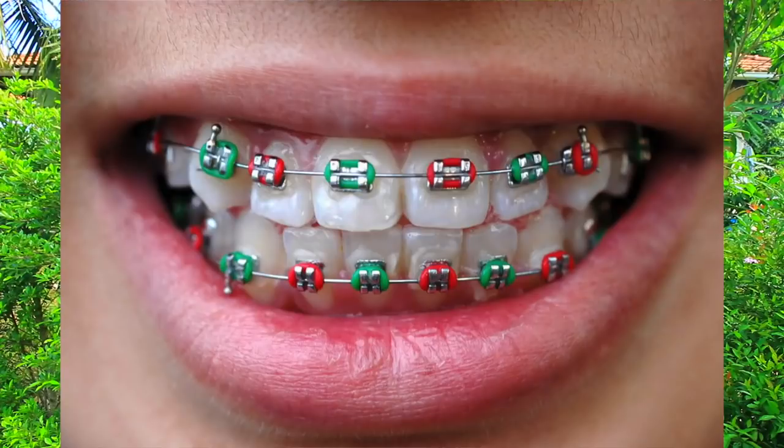Hey there people, it's Danny from Conscious Calisthenics. So are you someone that has teeth that are misaligned and you would like to straighten them but you don't want to go down the route of having horrible looking metal braces? If so, I'm going to talk to you about my own personal experience with invisible braces, because I am someone that didn't have perfectly straight teeth at the top — just at the front. The bottom of my teeth is absolutely fine.